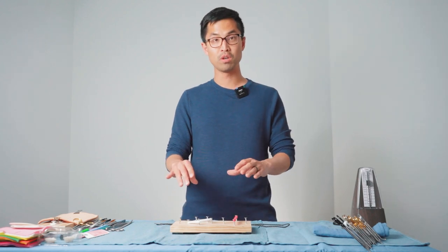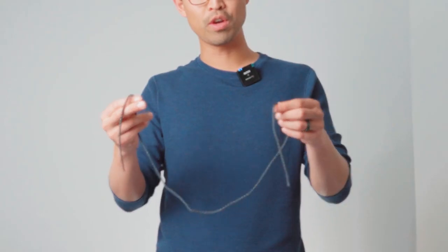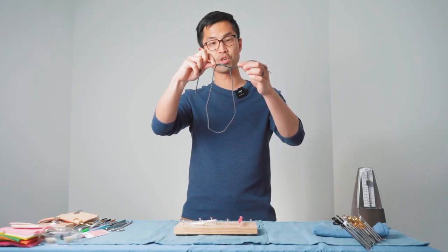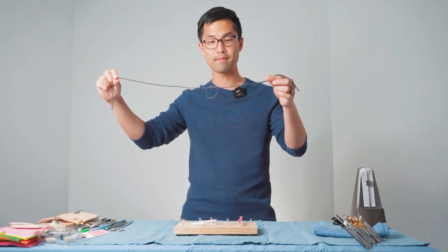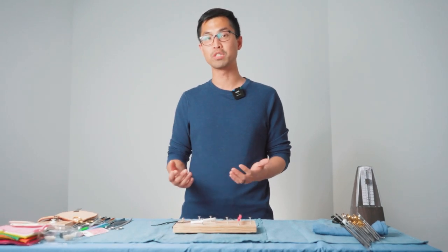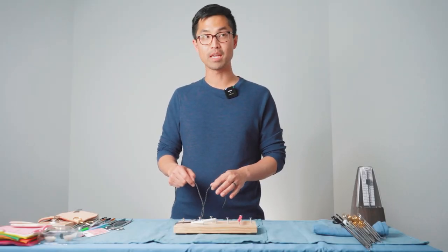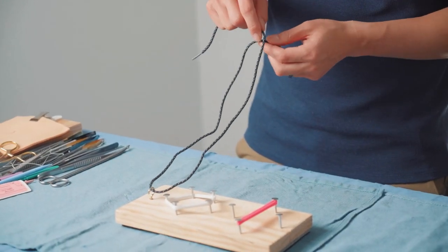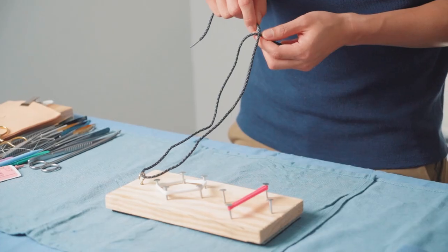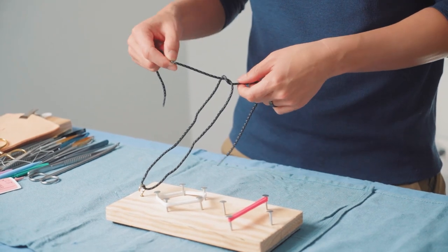First of all, instead of teaching you something on a suture board, I want you to think about what you do every single day when you tie a knot. Simply put, you're creating a loop using a thread and then passing one of the tails through that loop and around the other suture in order to create what we conventionally refer to as a knot. Tying a knot in a surgical setting is no different, except surgeons have discovered ways to make their hand motions more efficient over time. When I'm tying a knot inside the body — this specific example is a one-handed knot — I'm still creating a loop in between the two threads and then finding a way to efficiently pass the tail through the center of that loop, which creates the same knot.